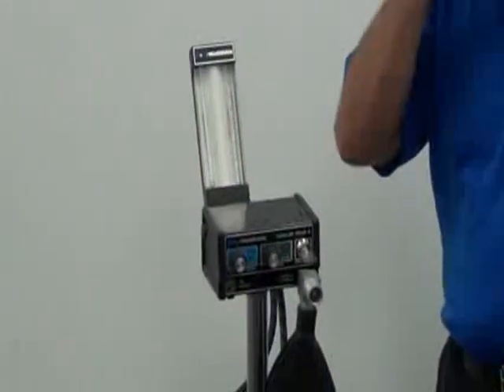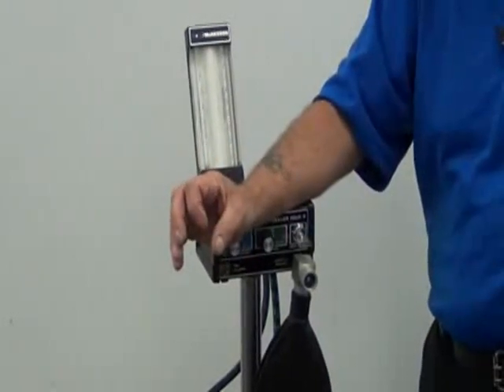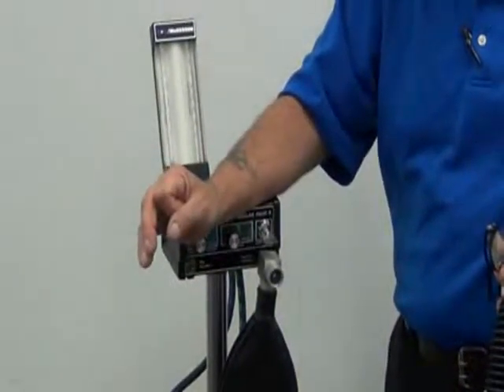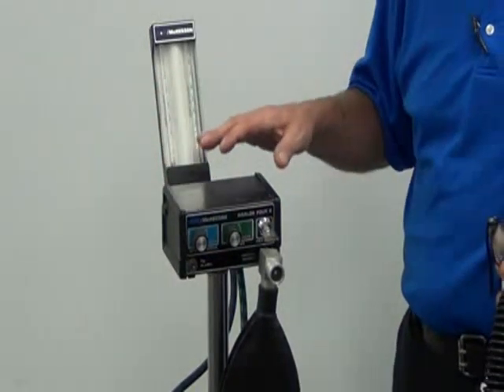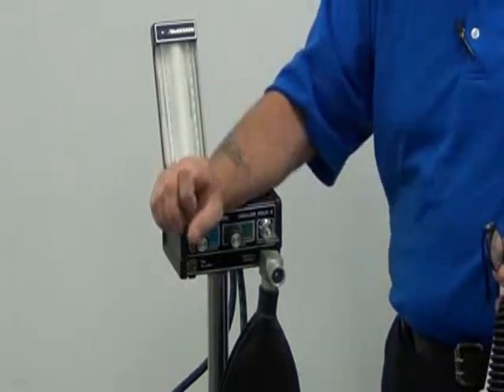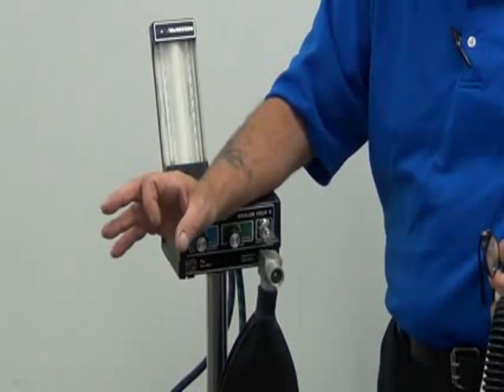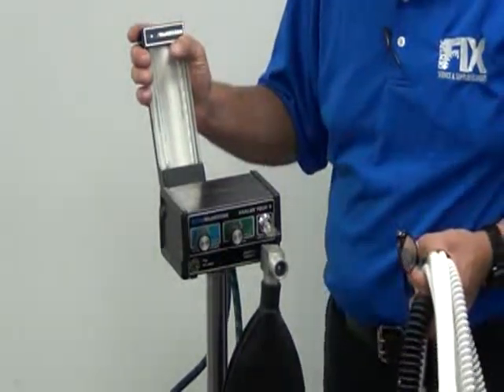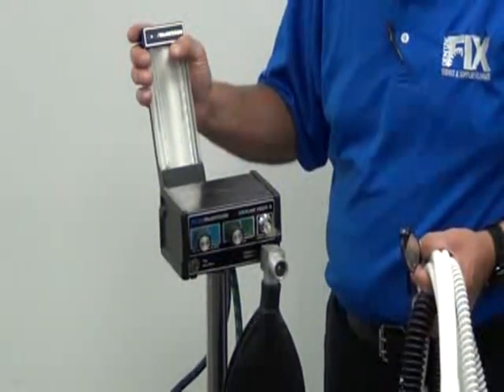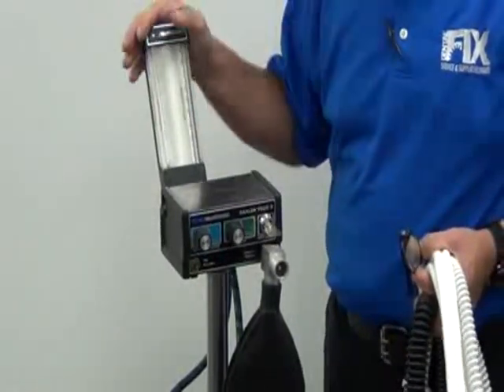You never want the nitrous output, your ball floating on the nitrous in the flow meter, to be more than the oxygen. You always have to have more oxygen coming in than nitrous. If at any point during your repair you see that the nitrous ball overrides the oxygen ball, the flow meter is not right, stop it, pack it up, and send it to corporate. There is nothing serviceable inside these machines that you should be servicing in the field. These are precise tolerances and calibrations that must be observed by the factory or by SER, small equipment repair.